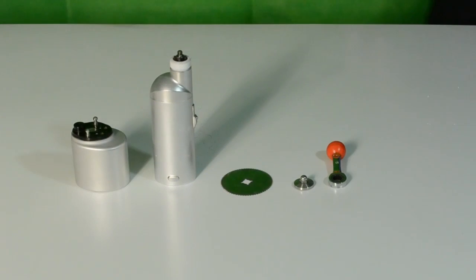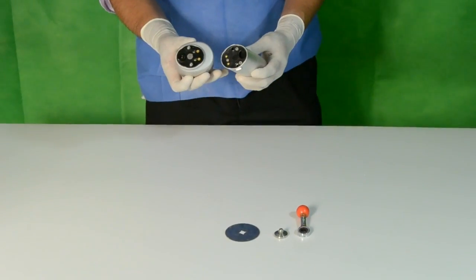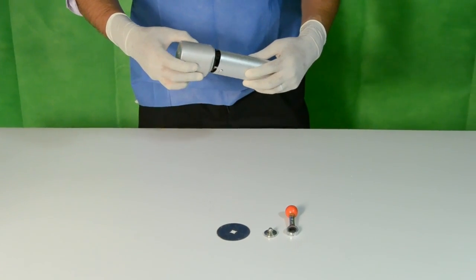To use, place the battery into the handpiece. The battery prominences are placed and this battery is inserted into the handpiece holes, applying a gentle pressure.